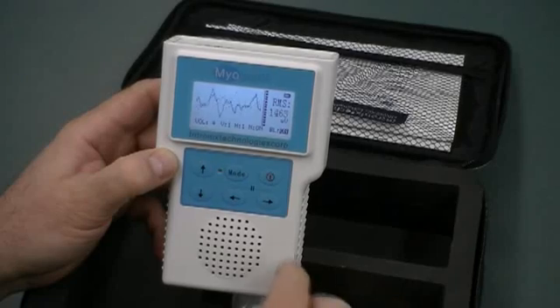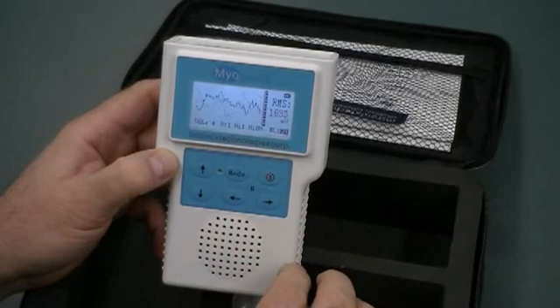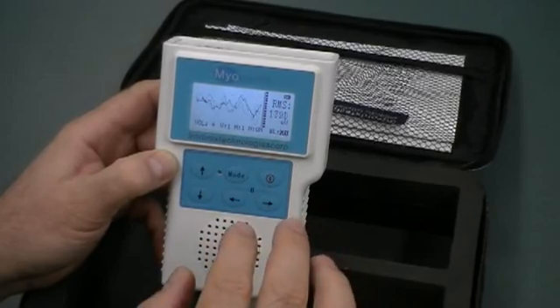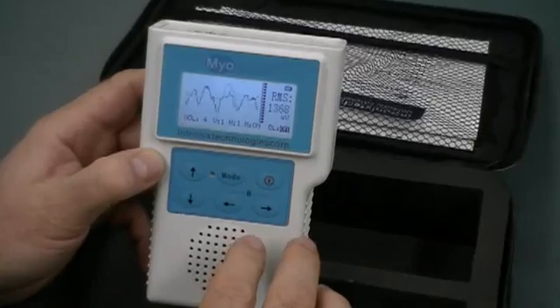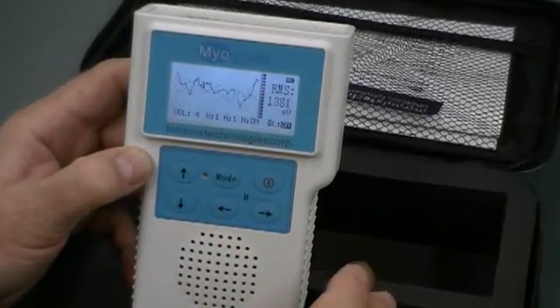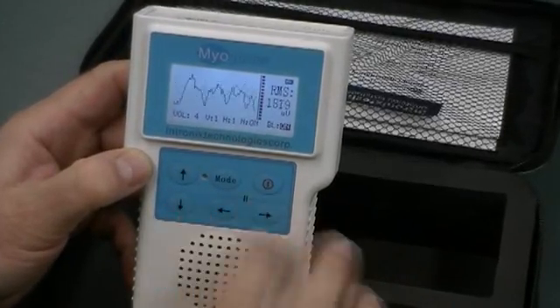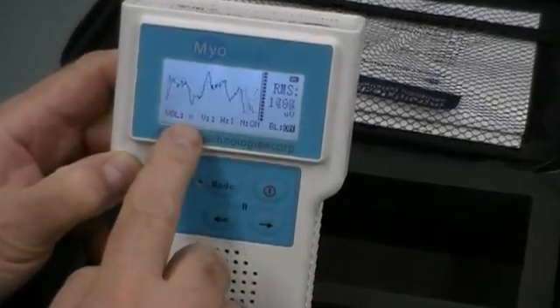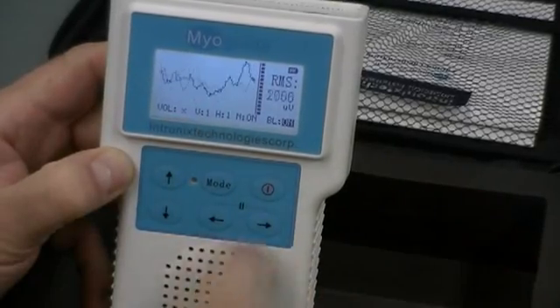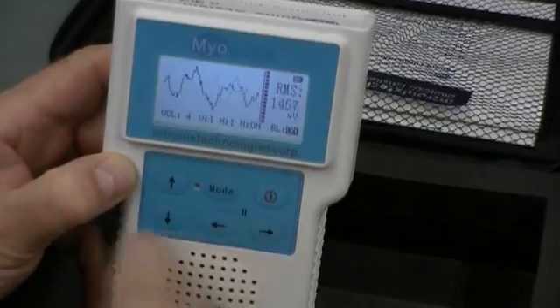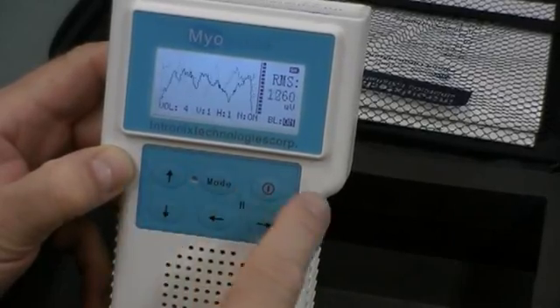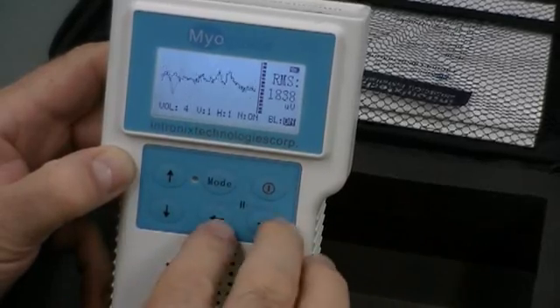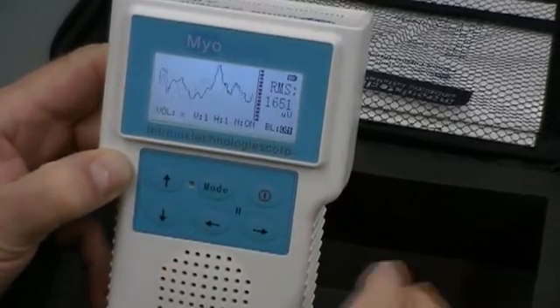Now, the other important feature that we have in the EMG mode is the audio mute feature, and that allows you to mute the audio while you're in between patient encounters or you're setting up or whatever while leaving the machine on. So you just hit these two buttons simultaneously. You'll get an X over there and very clearly the audio will be off. If you touch any button, it doesn't matter which one, it'll go back to the previously set volume level. So very convenient. So let's just quiet this down for a minute.